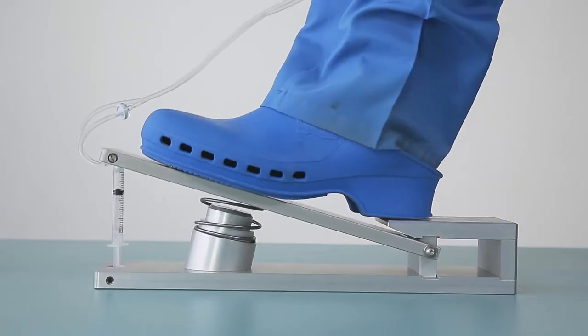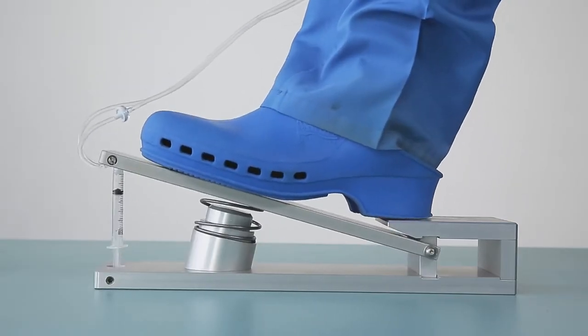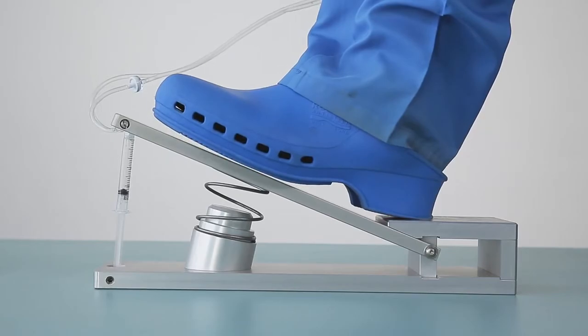For safety reasons, full compression of the pump will generate no more than 2.5 ml.